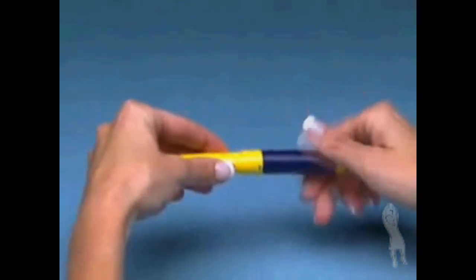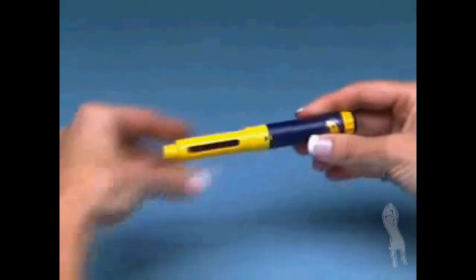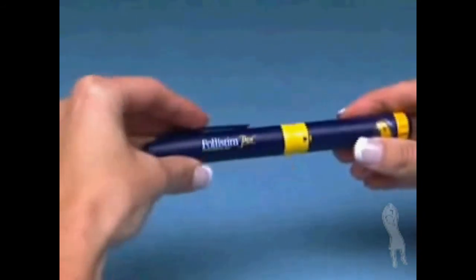Now put the Follistim pen back together without a cartridge and cover with the cap to store for your next injection.